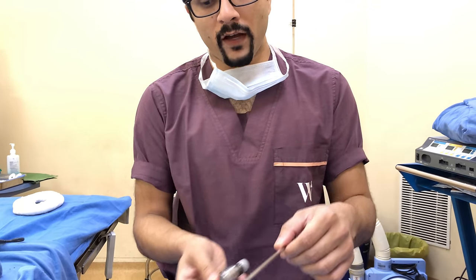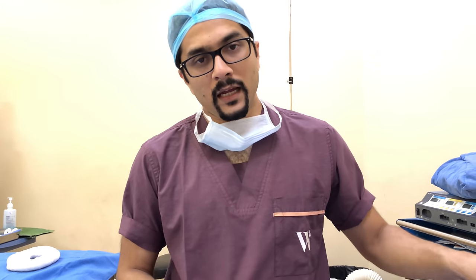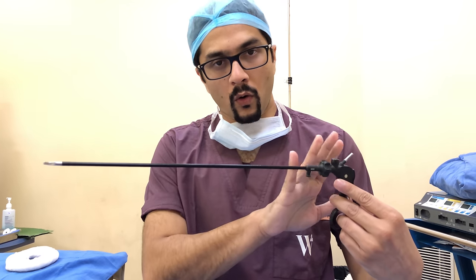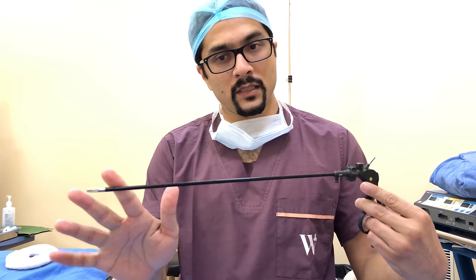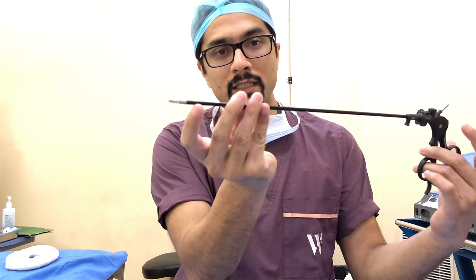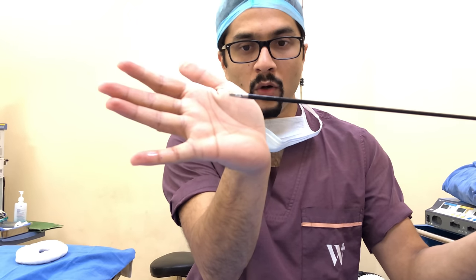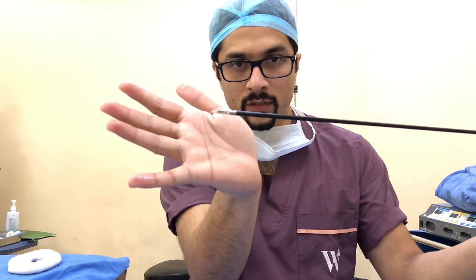That was a 10 mm trocar; you can also have 5 mm and 3 mm trocars. Once you introduce a trocar, you put laparoscopic instruments through them. Laparoscopic instruments are long black instruments and you can see that only the tip is exposed.